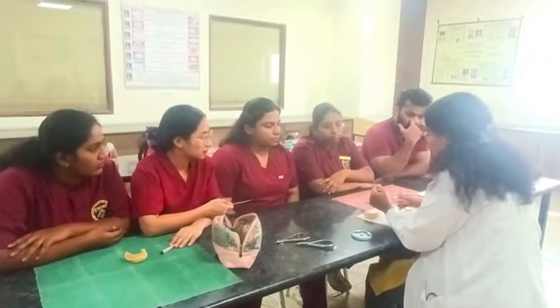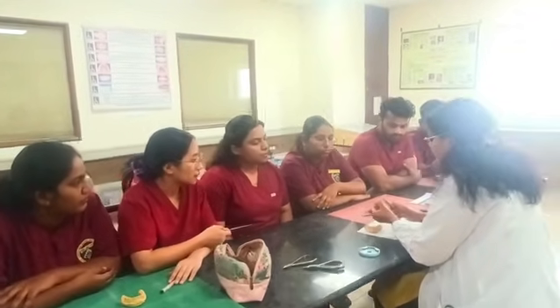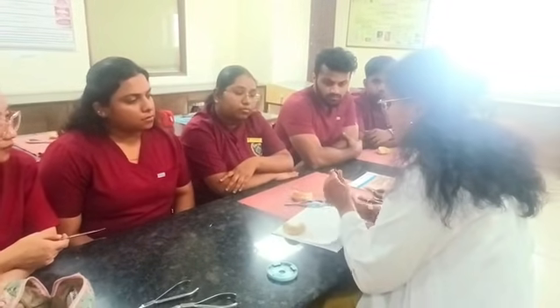Then you are going to give your L-shaped bend using which plier? What is this plier called? So you are going to make the L-shaped bend. You are going to complete it after marking. Okay, the mesiodistal width, you are going to complete your L-shaped bend, right? And a slight overlap of this bend has to be given while you are doing this, so it correctly engages your undercut areas.